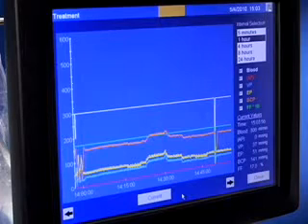Look at the yellow line. The effluent pressure will increase or decrease if the filter is clogging or clotting.